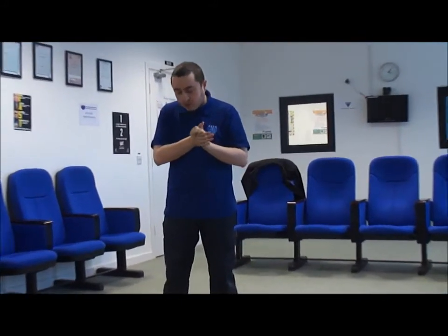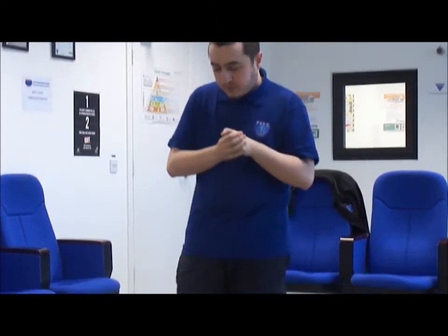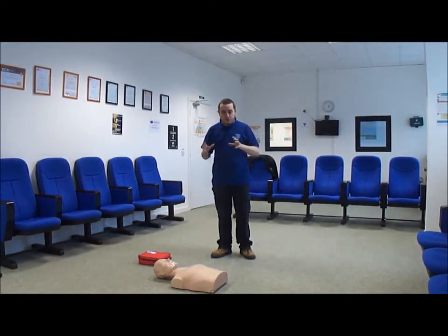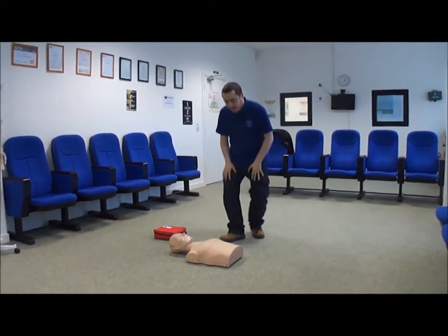Today what I'm going to show you is a skill in CPR and use of an automated external defibrillator. We're going to go through it step by step: how we go about providing CPR, chest compressions, rescue breaths and using an automated external defibrillator. The first step we always do is make sure our scene is safe as we enter, safe for us, and we're wearing protective equipment, so our gloves and masks if necessary.